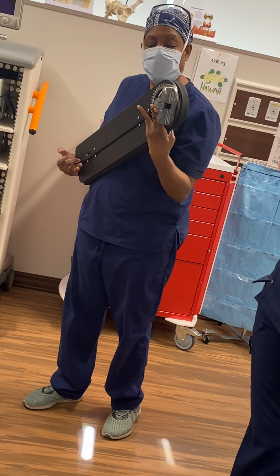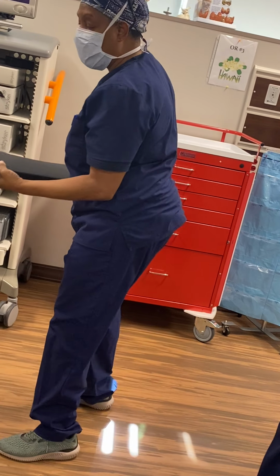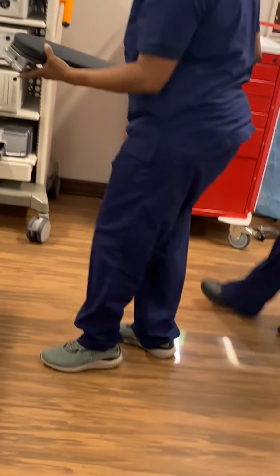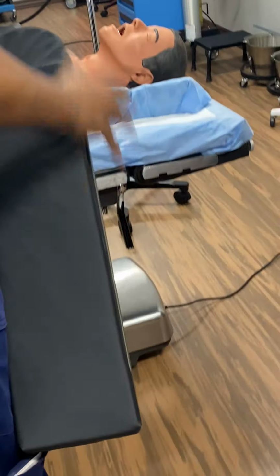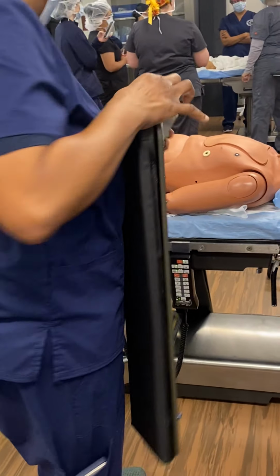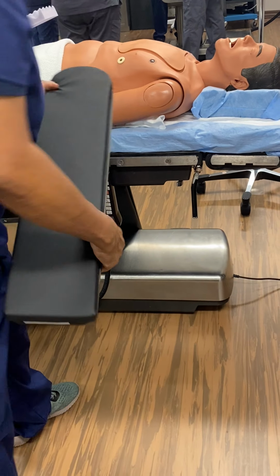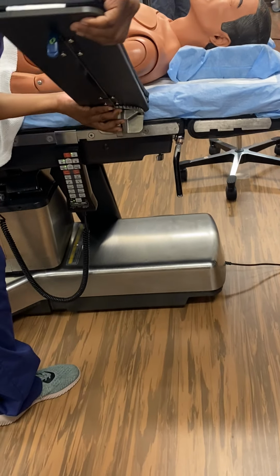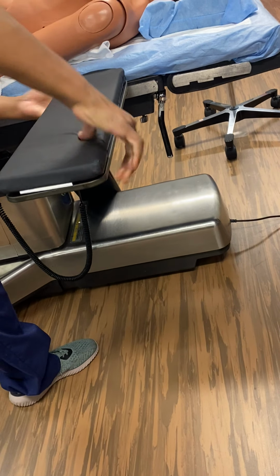So I'm always making sure it's right there, and that they're not in my area. This part here, you lift it right here and slide it in, then tilt it down like this. You see this little hook thing? It's going to seat right there. You tilt it, you'll hear it, and then you let it go.